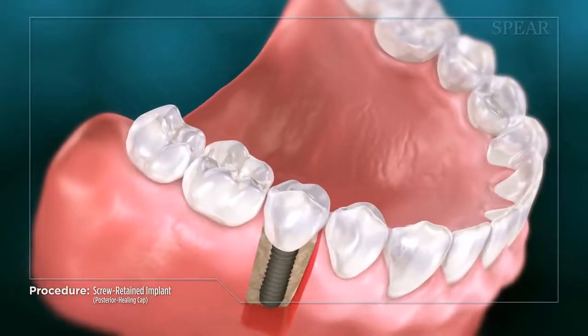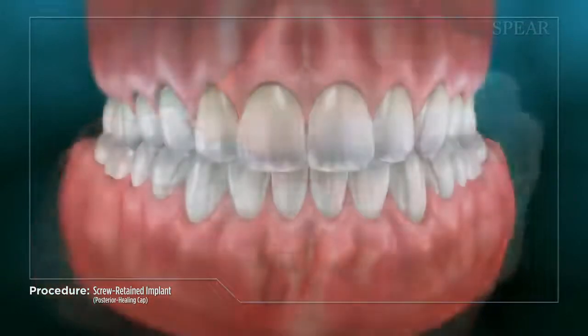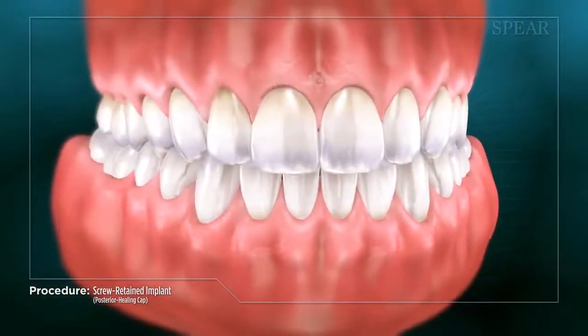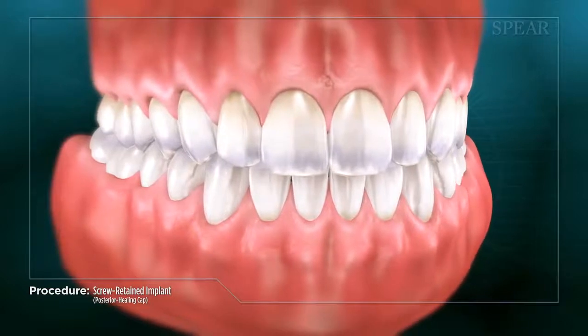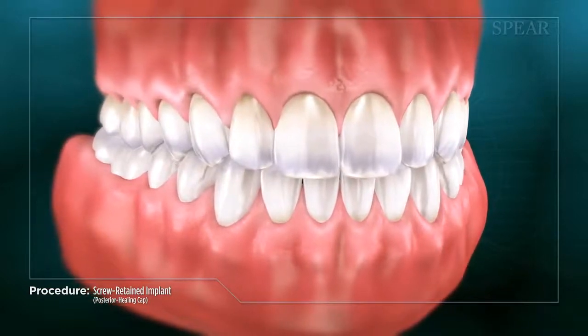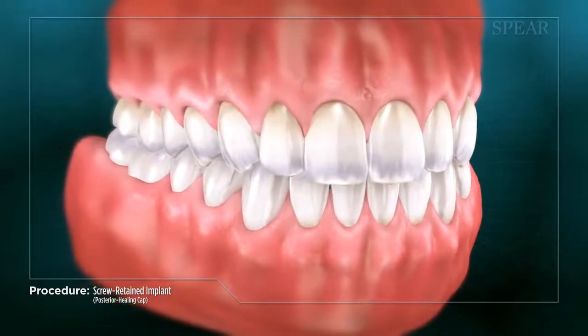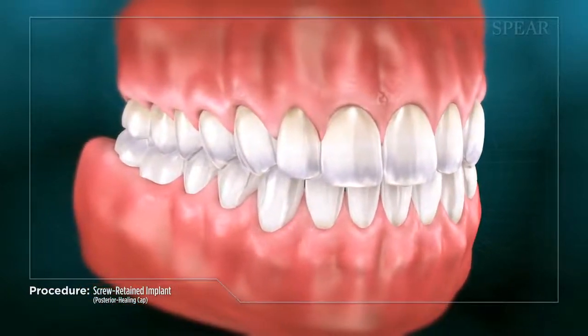With your implant placement complete, your tooth is restored to ideal shape and function, while continuing to stabilize, protect, and preserve the surrounding tissue.